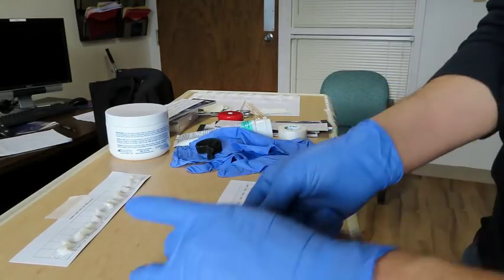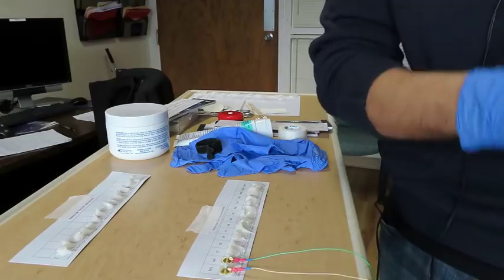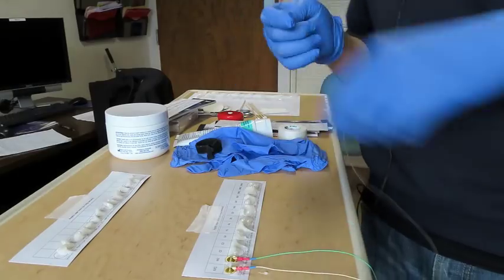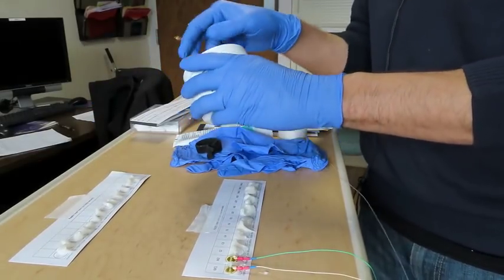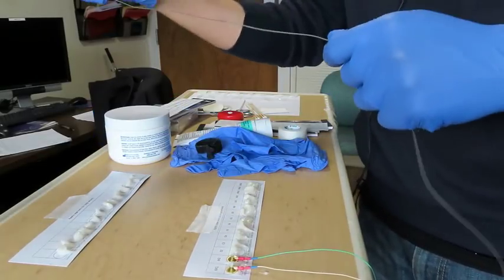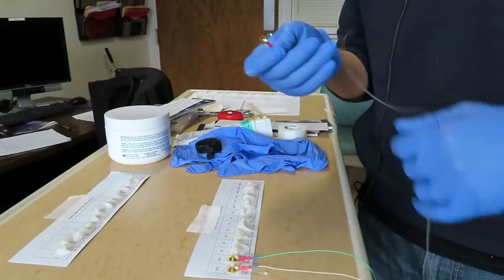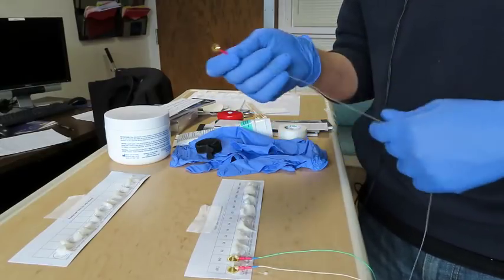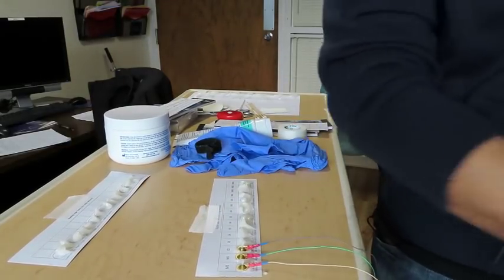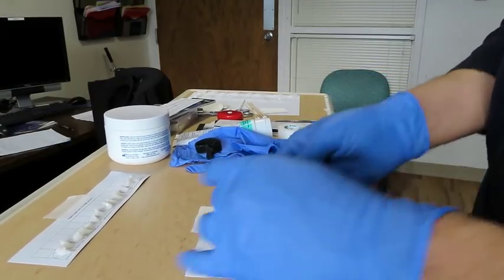Again, a lot of technicians or technologists do this around the time the patients are here or during setup. So what happens is you're basically sitting here, you're looking at the head box, you're looking at the wire, and then they're normally taking the paste and they're either dipping it in, or they're putting paste on their glove and dipping it from their glove and then going to the patient. But the whole thing is you're just not as focused with the patient because you're just looking at the inputs, and you may miss something that the patient's talking about, or the patient might think that you're just not really paying much attention to what's going on with their sleep or their issue, or what's going on with their seizures or anything. So make sure your tape is on there really good.